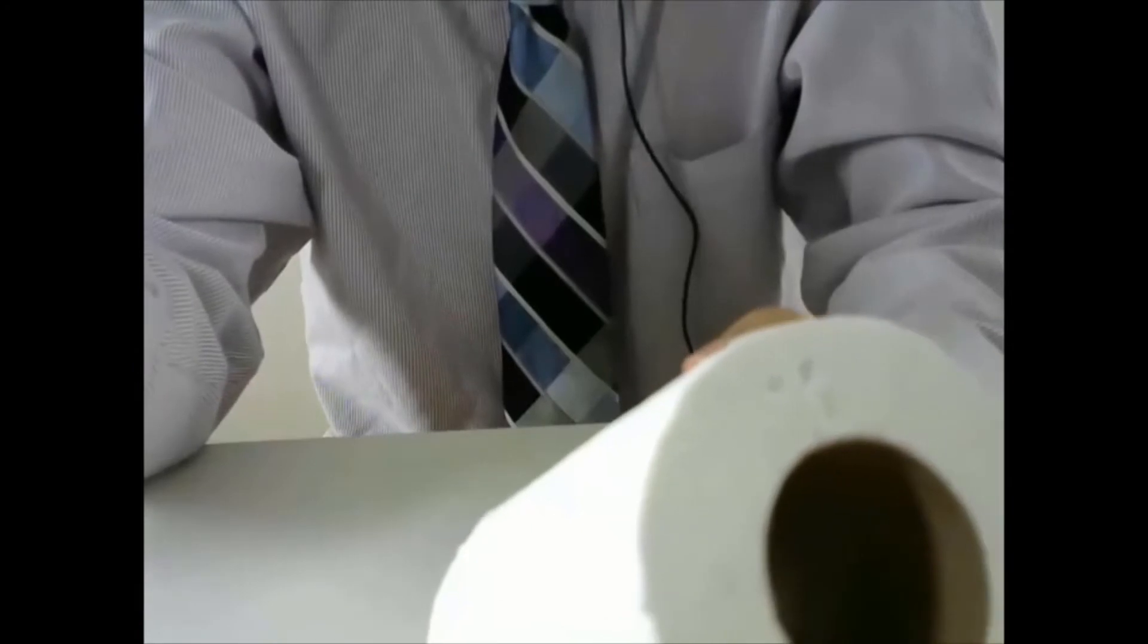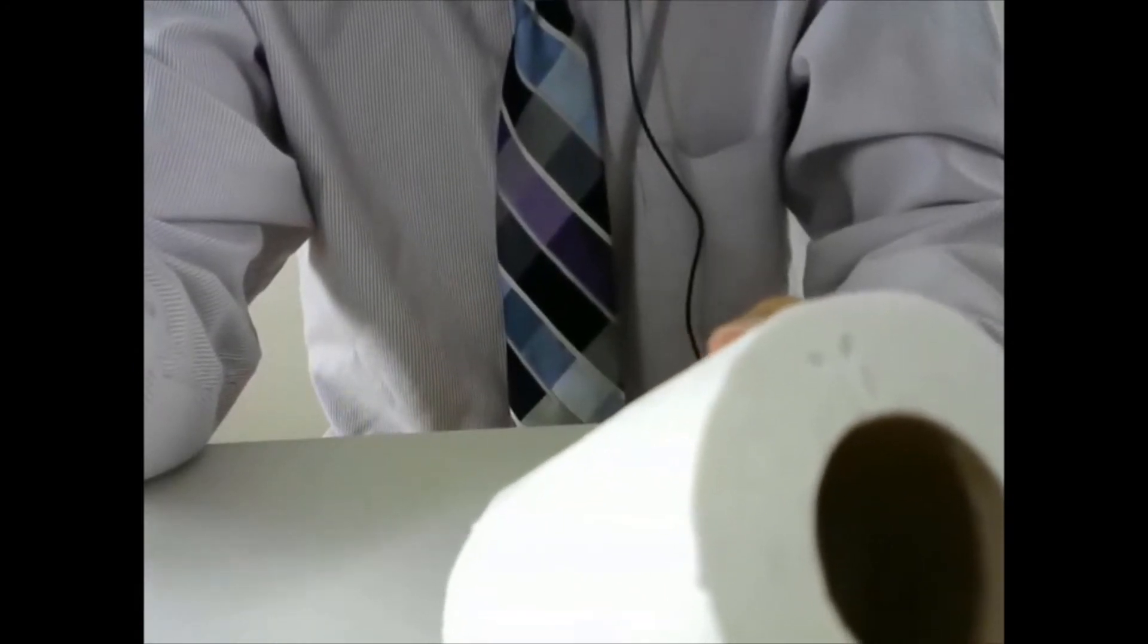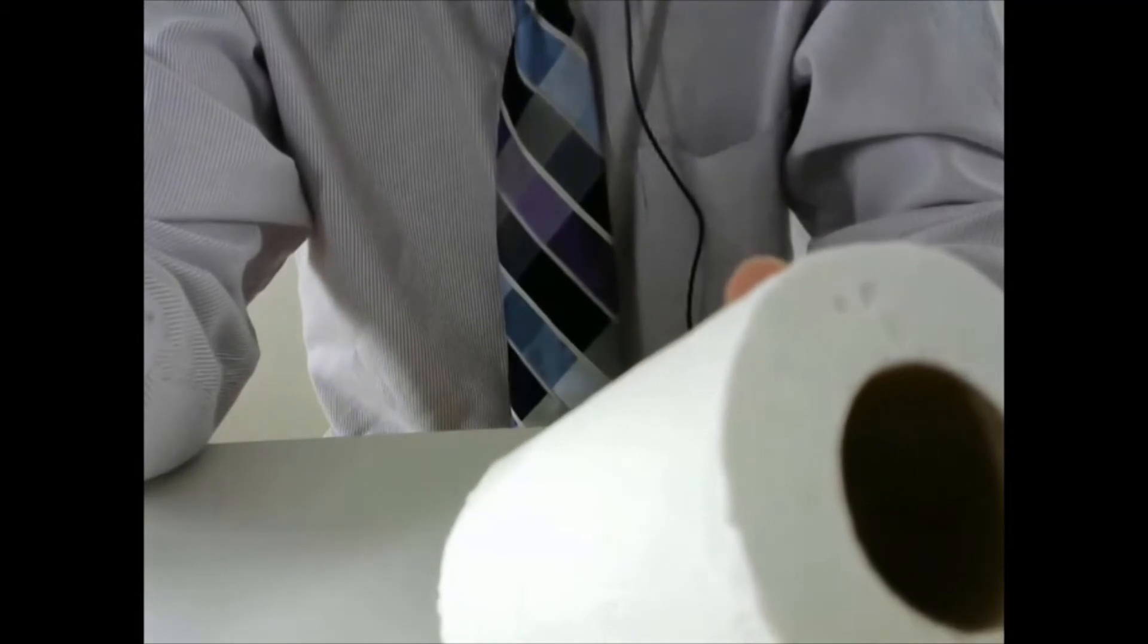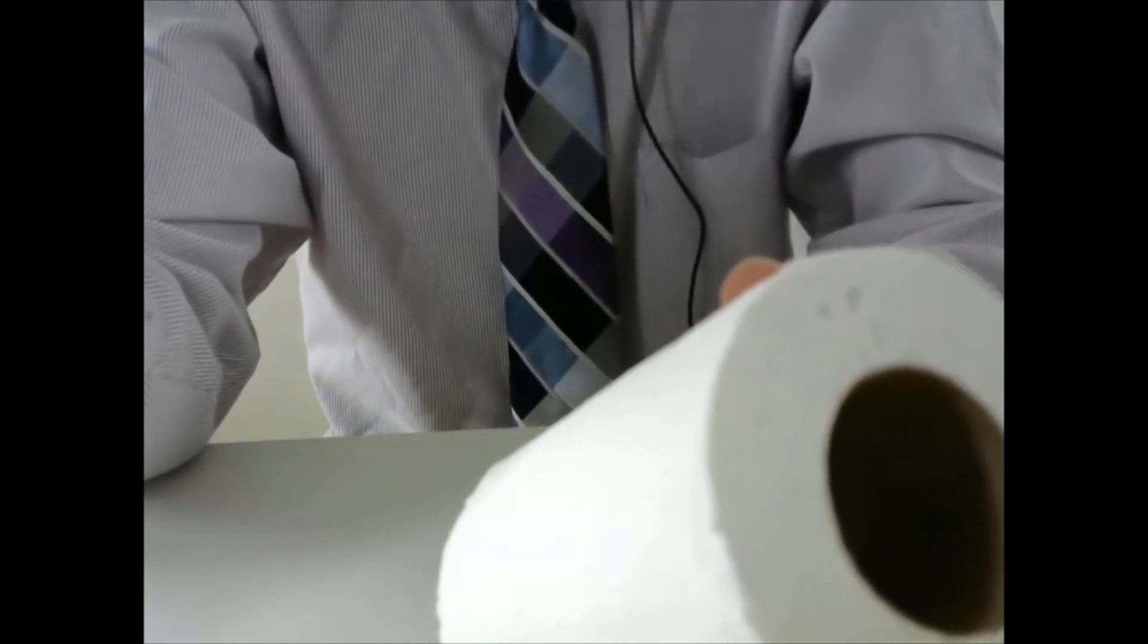In order to save myself another injection, I will just inject it on this paper towel. You can inject in your belly, upper arm, thigh, or hip.